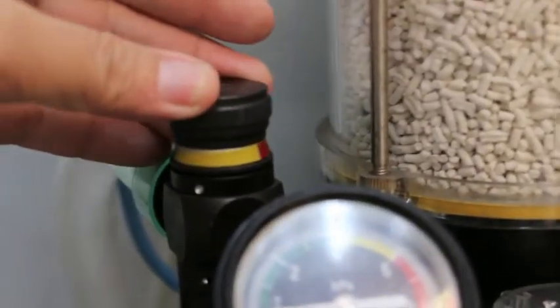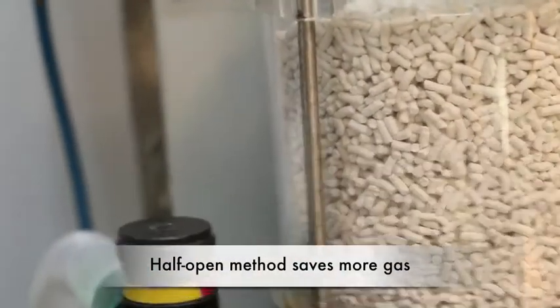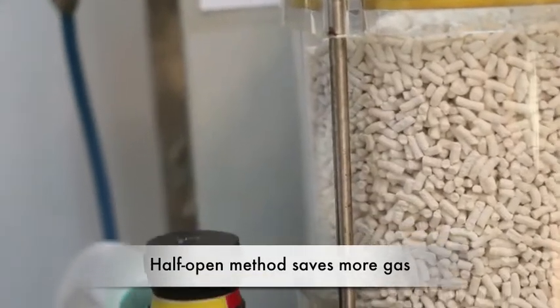Now, the semi-open or half-closed, the yellow one, is half of it gets released out to the scavenger.